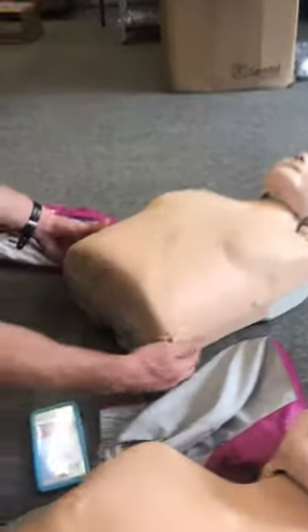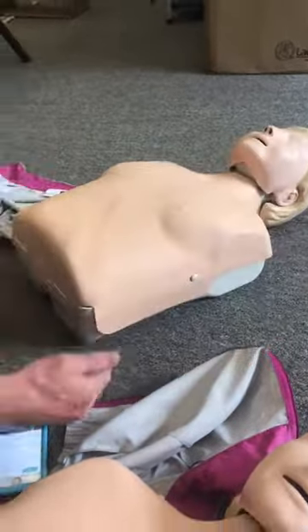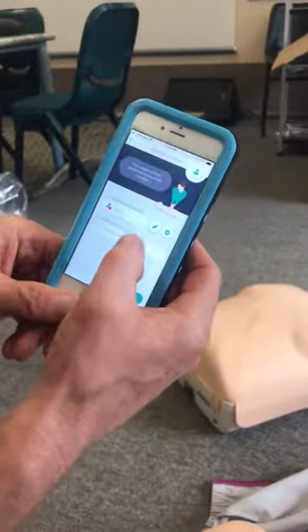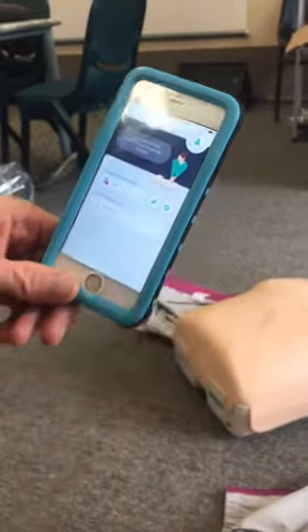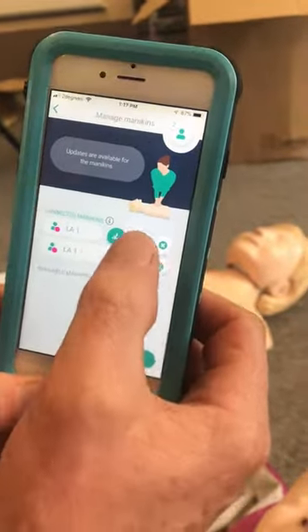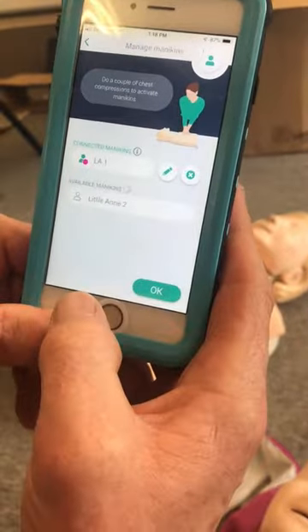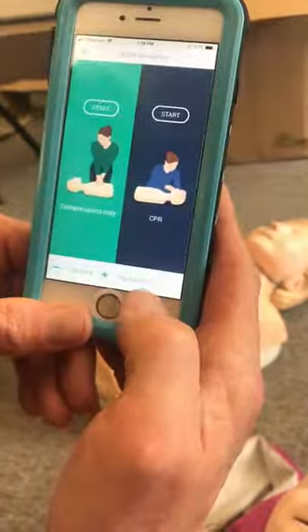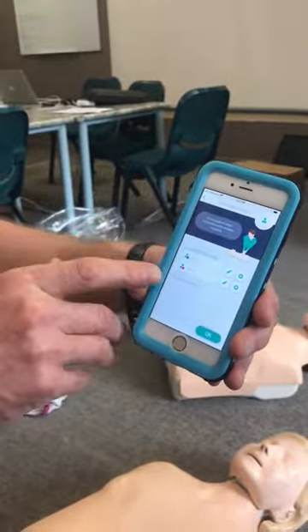Each mannequin is going to have a number on the bottom right that you can see — that's how you'll know. So we're going to match the numbers on your phones with the numbers on the mannequin. Now all we need to do to initiate the next mannequin is to click on this, and if I do a couple of chest compressions — as soon as I do that, it's defaulted to call it LA1, so we're going to call this one LA2. If I go into my mannequins here, I can see that I've got two mannequins — one and two — set up.